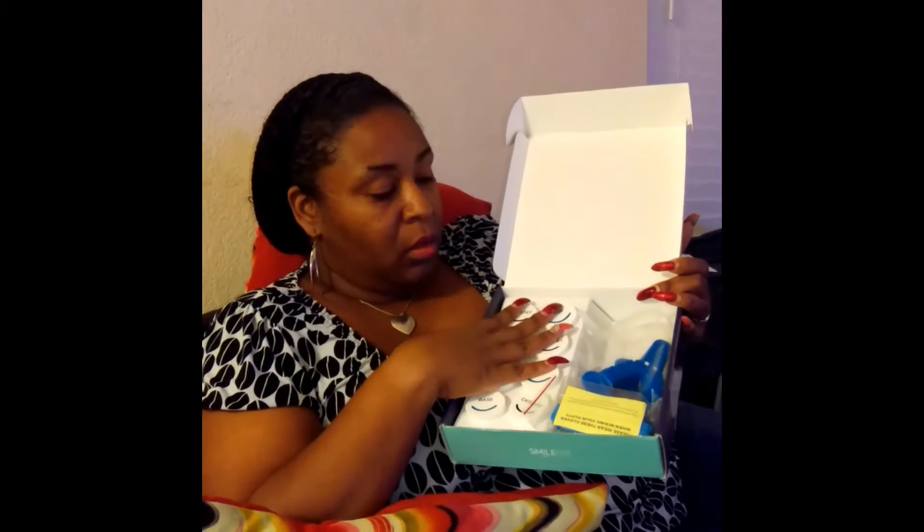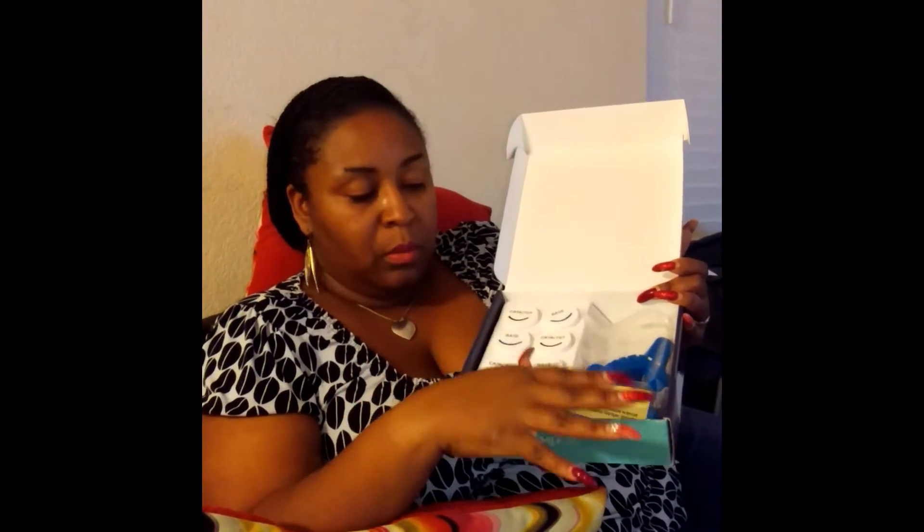It also comes with these. You grab these two clay pieces — I think you have about 25 seconds — but I'm not going to open them yet because once I open them I have to start immediately. They'll dry out if I don't use them right away, and that defeats the purpose. I'll open them to show you when I go to do my molding.